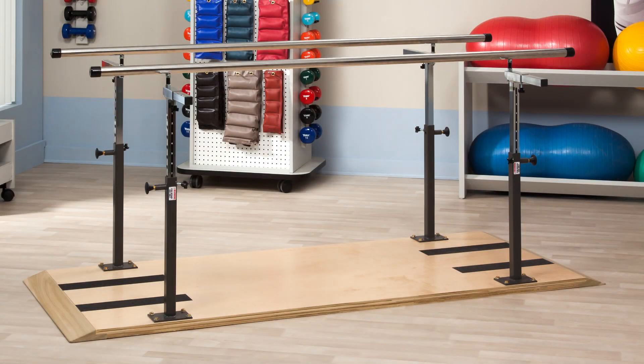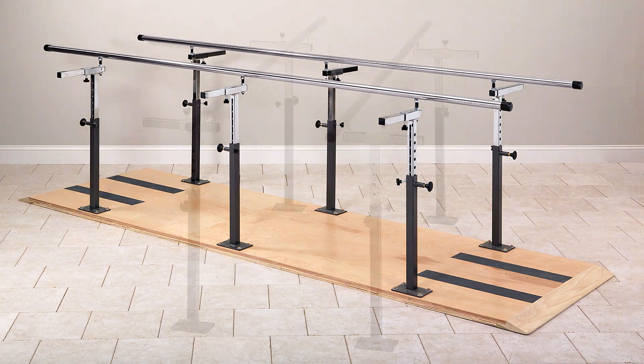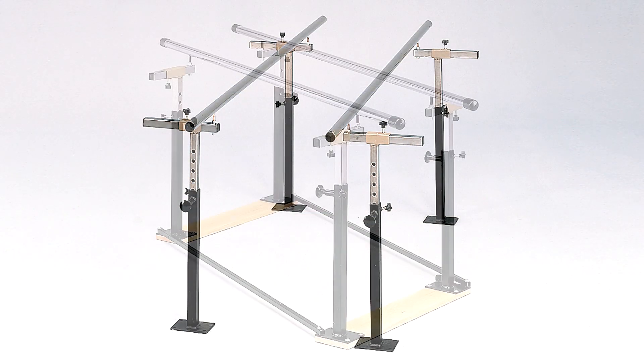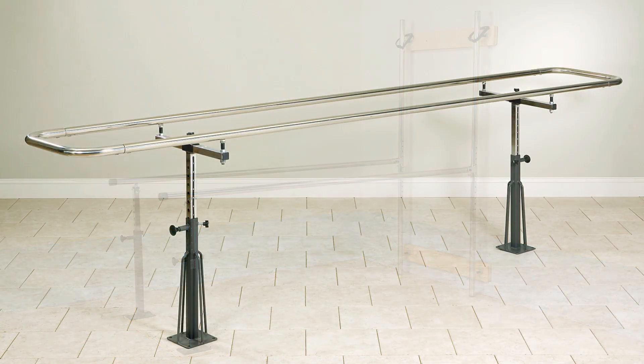Clinton has six models of parallel bars from standard platform and bariatric platform models, the floor mounted, floor folding, wall mounted folding parallel bars, and even a hemiplegic model.